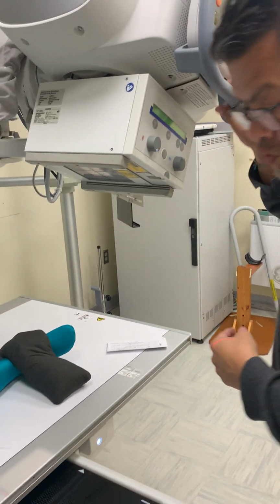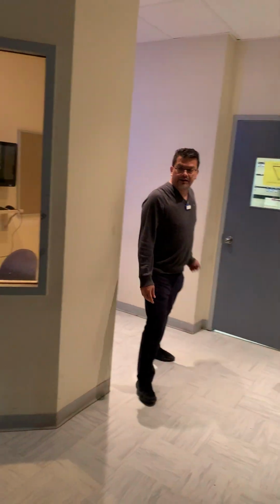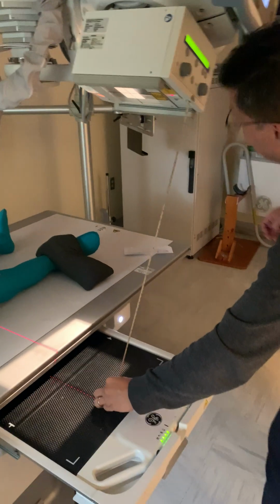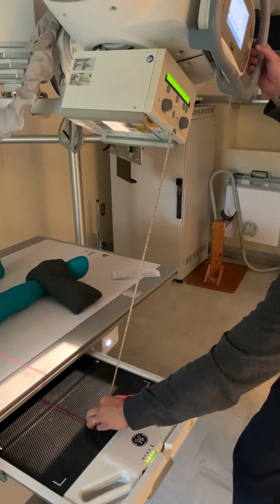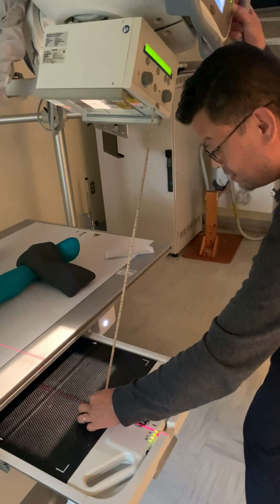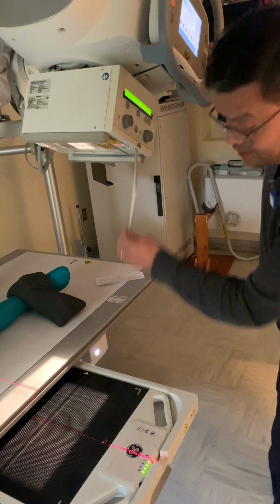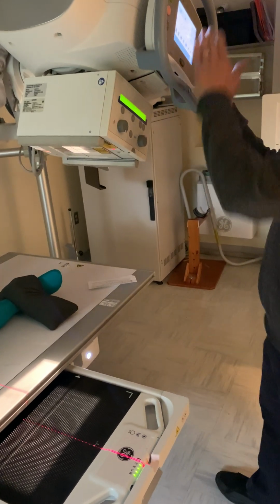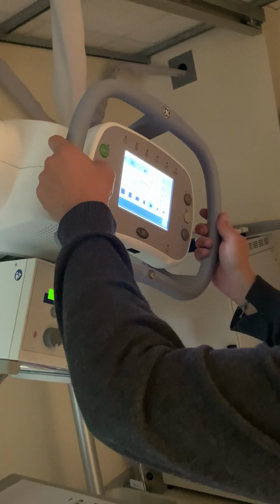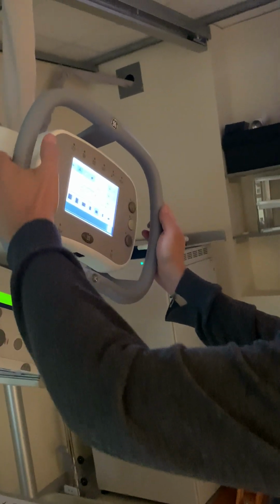One thing that I will do just quickly is turn off the lights so you can see better this step. Here I will put my ruler to the center of my image receptor, and I will just carefully bring it to 40, and I'm right on. Once I have angulation and SID, I'm ready to center lock it, or what we call lateral detent. How do I do that?